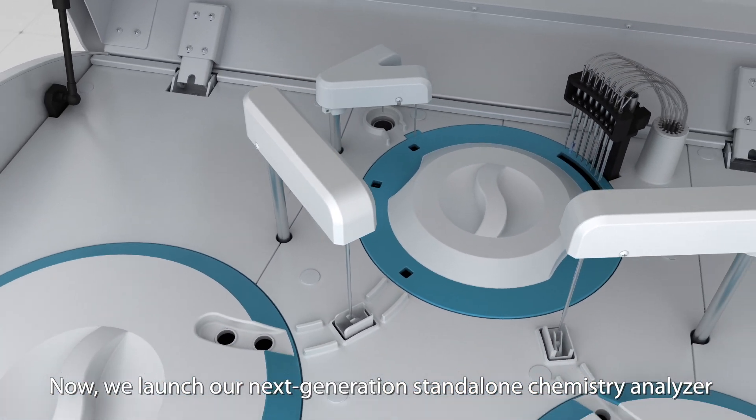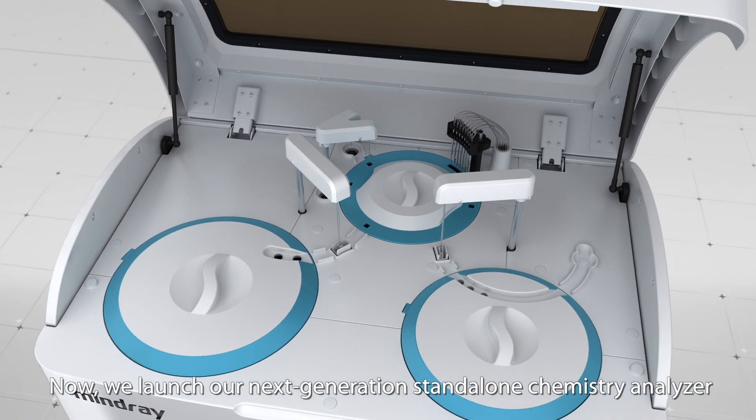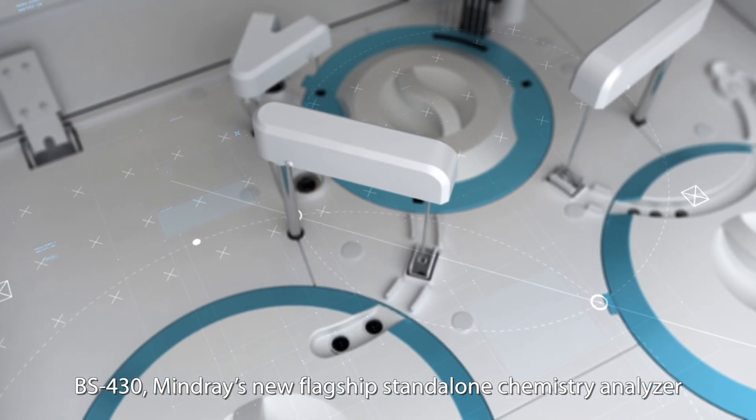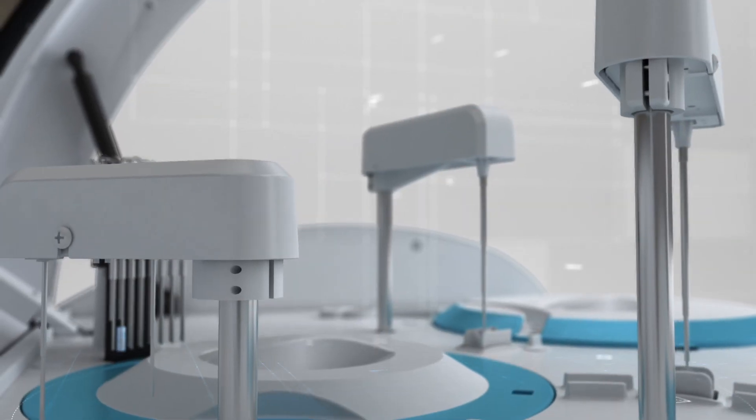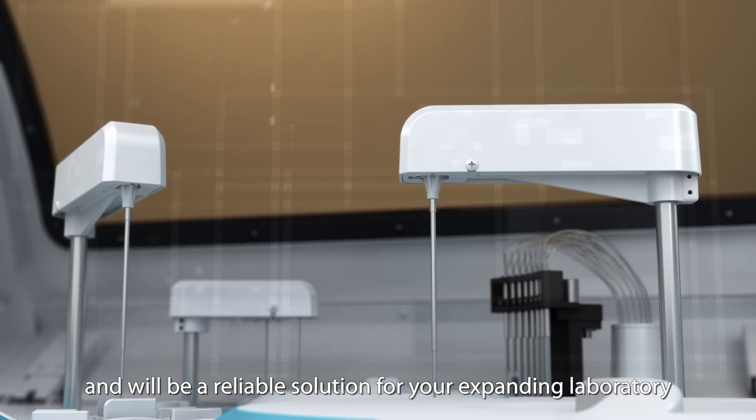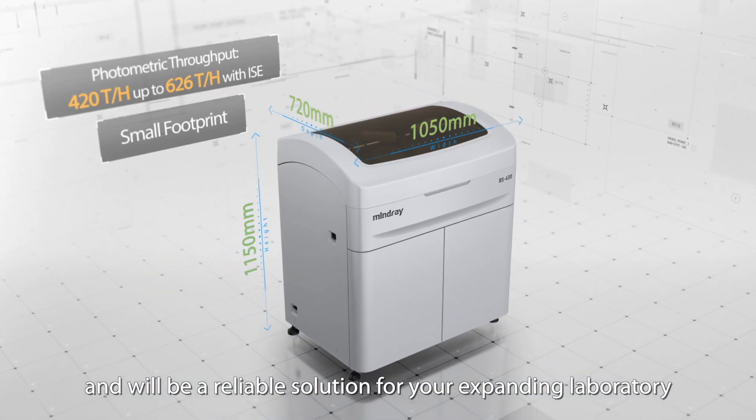Now, we launch our next-generation stand-alone chemistry analyzer, BS430. MindRay's new flagship stand-alone chemistry analyzer strikes a perfect balance between size and throughput, and will be a reliable solution for your expanding laboratory.